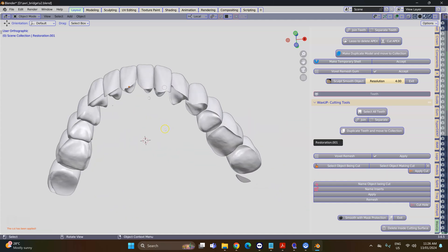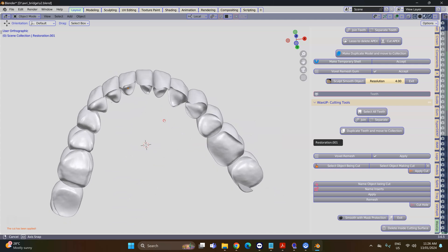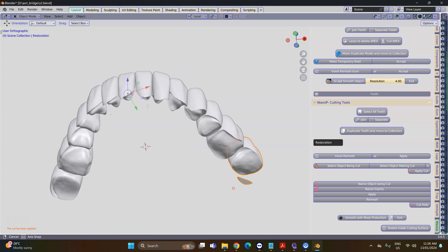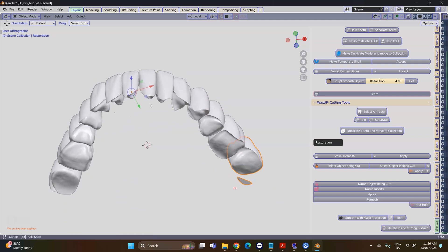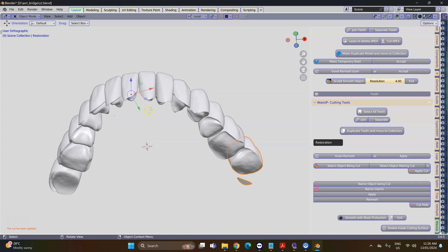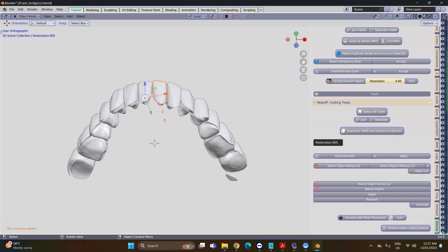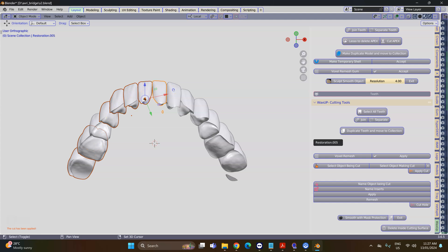Here we can see that the surface has all been cut, but we've also got these small little remnants all over the place and they're all called Restoration because they are part of the restoration that's been cut. We don't necessarily want to have those on the scene.